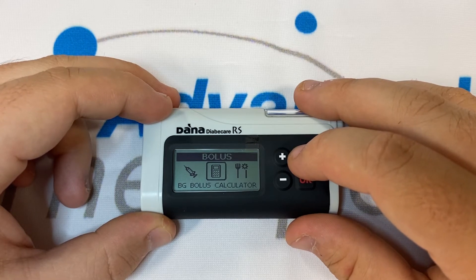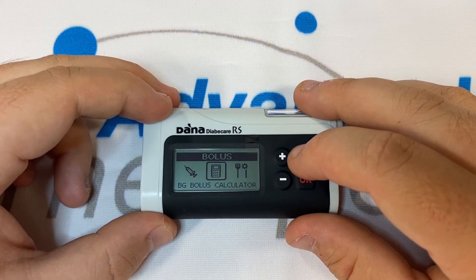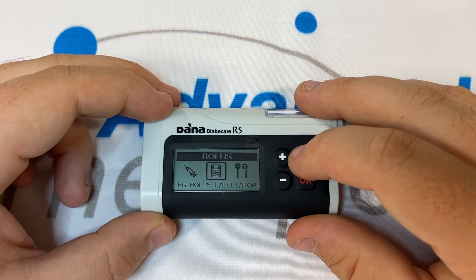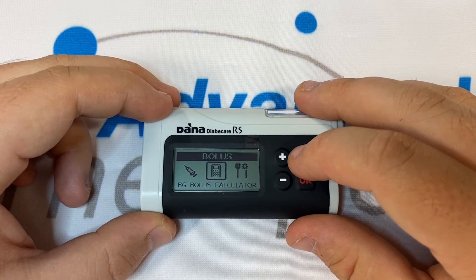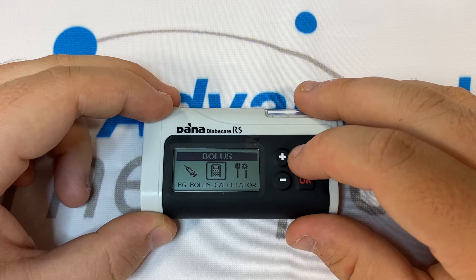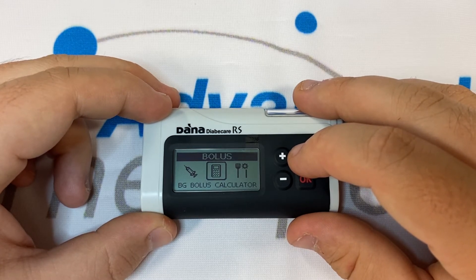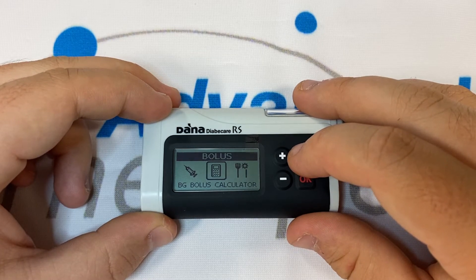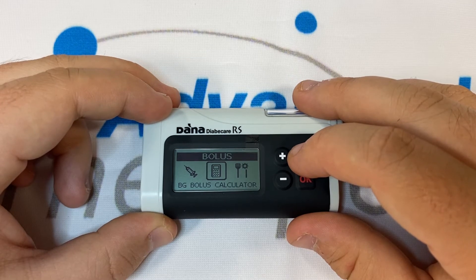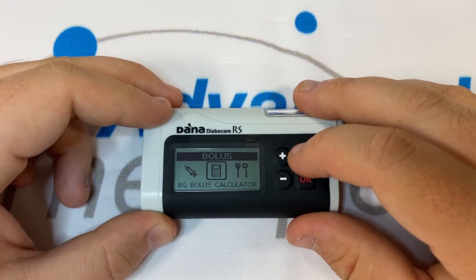The full calculator will always ask you for a blood glucose reading, and for that reason if you only wish to cover carbs and not perform any corrective bolus, the carb only calculator should be used. In this instance we'll pretend we've taken a blood glucose reading and have a BG result of 13, therefore we do wish to correct.